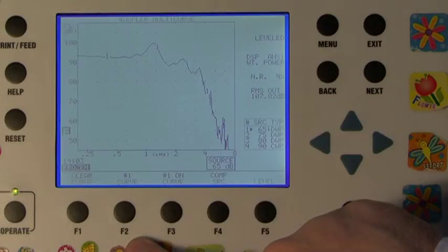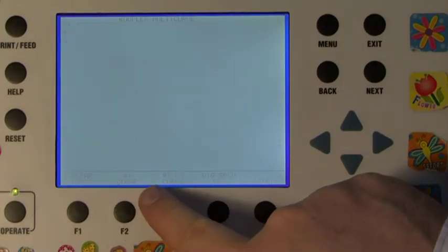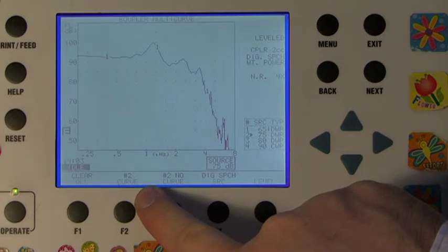Press the F2 button. Above the F2 button on the screen, it should read Curve 2. If not, press F2 repeatedly until Curve 2 is shown.